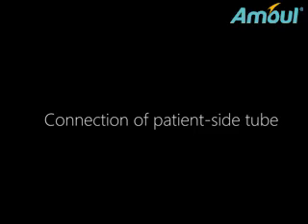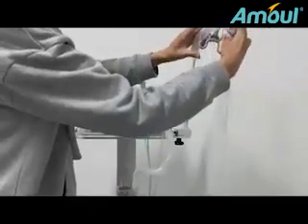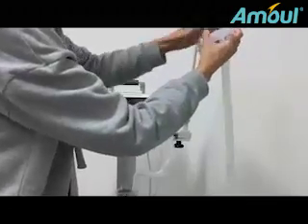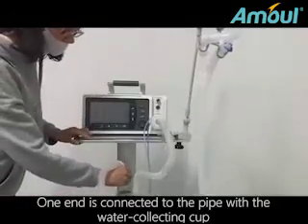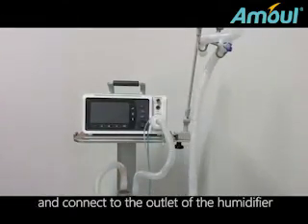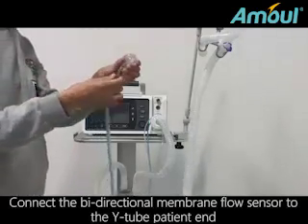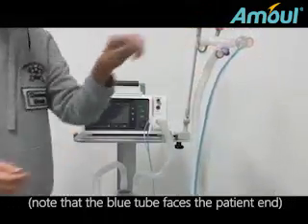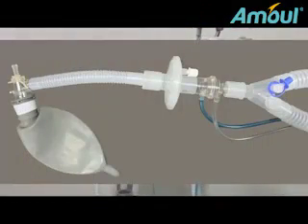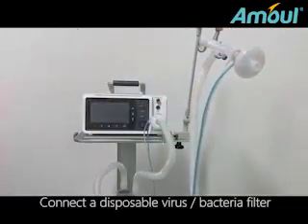Connection of patient side tube. Fix the Y tube on the arm. One end is connected to the pipe with the water collecting cup, and connect to the outlet of the humidifier. Connect the bidirectional membrane flow sensor to the Y tube patient end. Note that the blue tube faces the patient end. Connect a disposable virus bacteria filter.